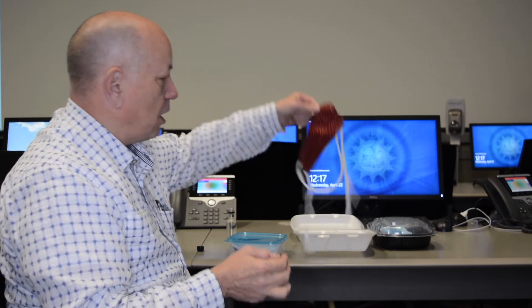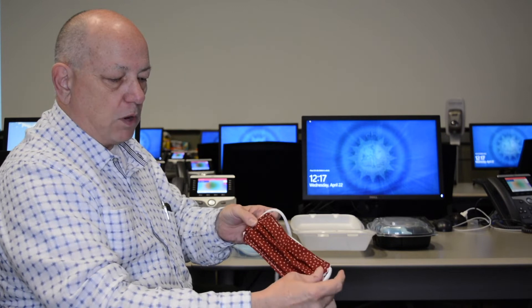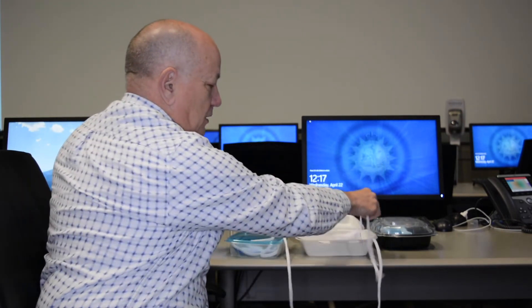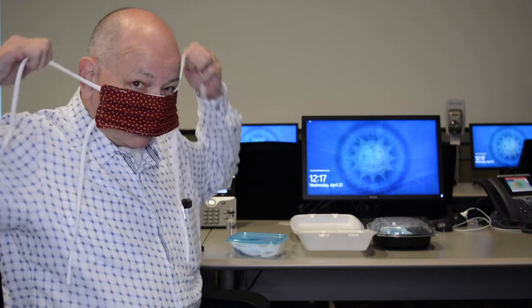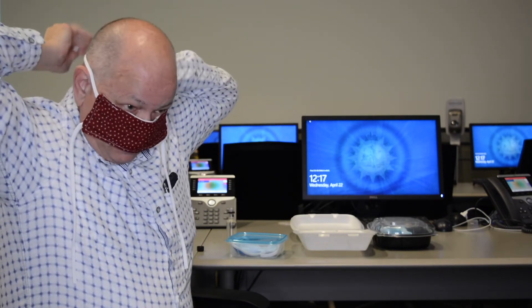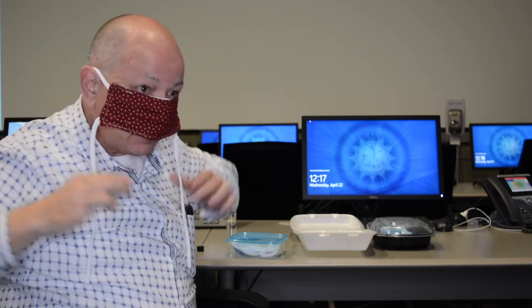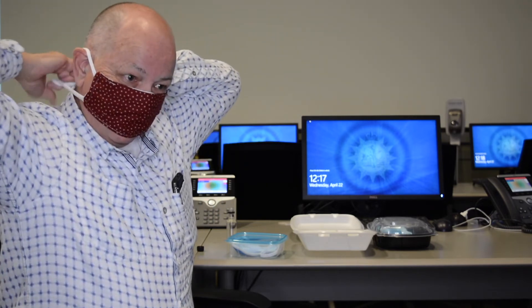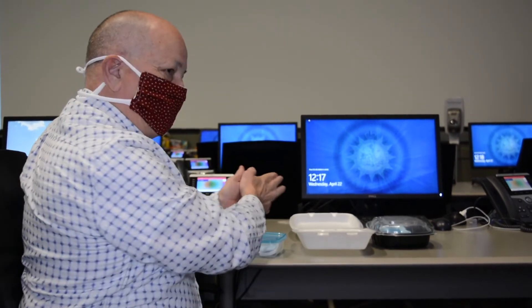It's also important to talk about masks that have ties on them or are pleated in the front. If you're wearing the pleats, the pleats go down. Again, when you pick it up out of the container, grab the ties. The first thing you want to do is put the top ties on above your ears and tie them up. Once that's on, grab the bottom ties and pull down and tie back there. If you need to adjust, pull it down on the outside, then wash your hands.